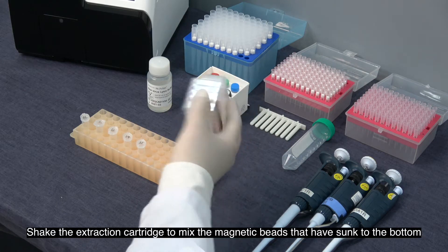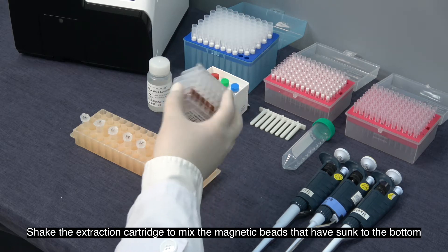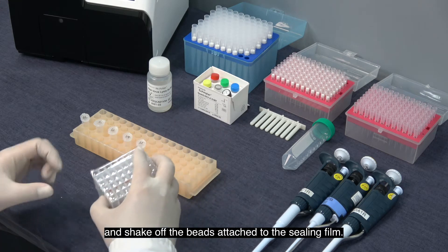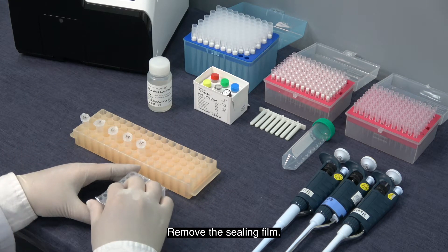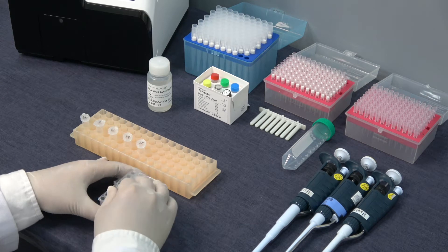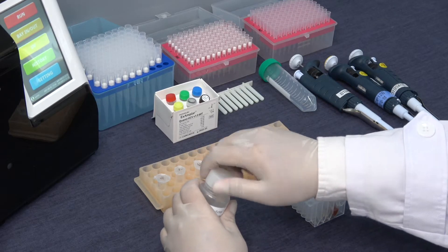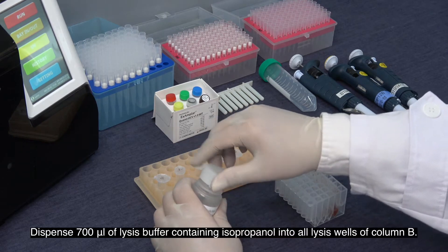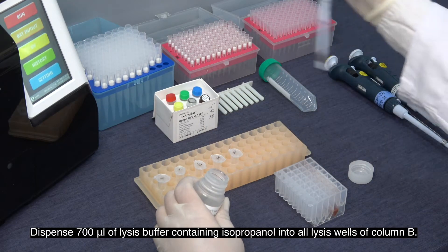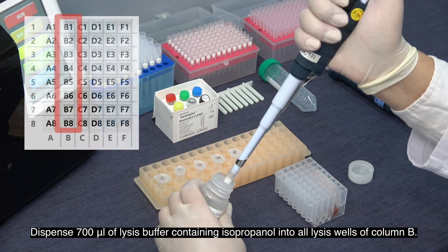Shake the extraction cartridge to mix the magnetic beads that have sunk to the bottom, and shake off the beads attached to the sealing film. Remove the sealing film. Dispense 700 µL of lysis buffer containing isopropanol into all lysis wells of column B.